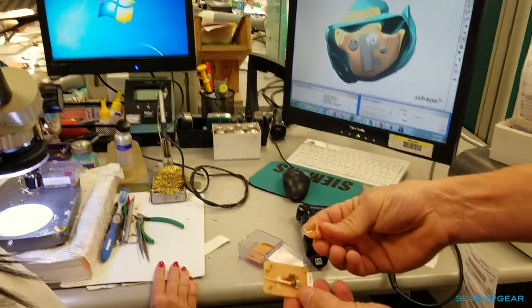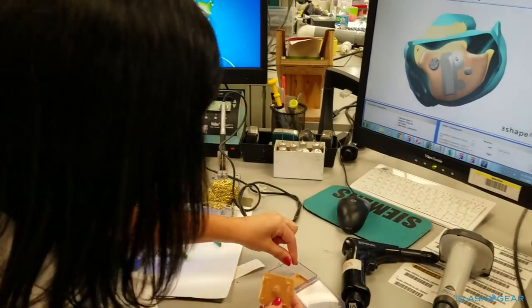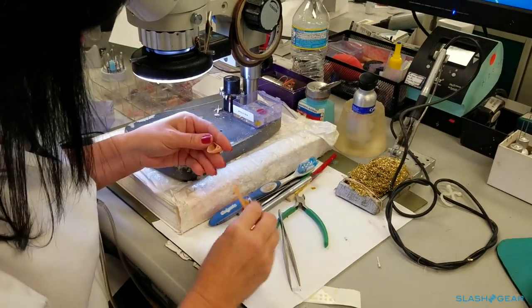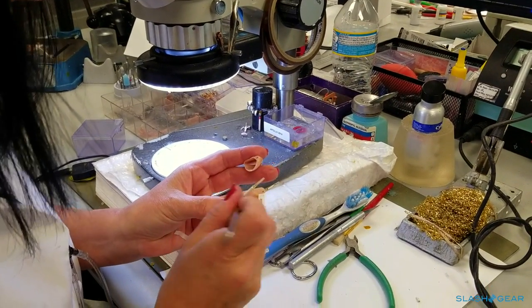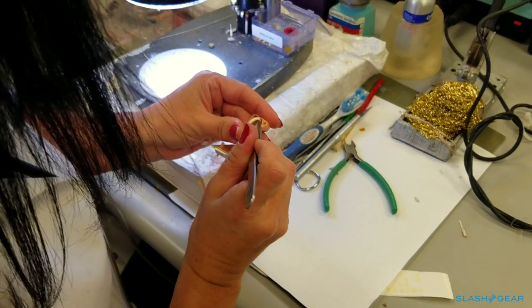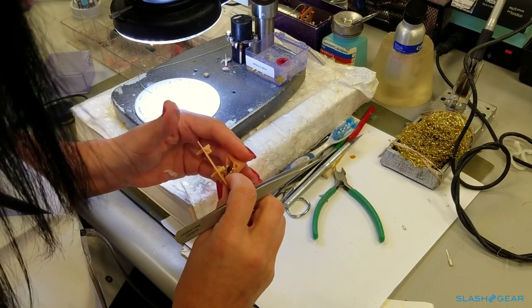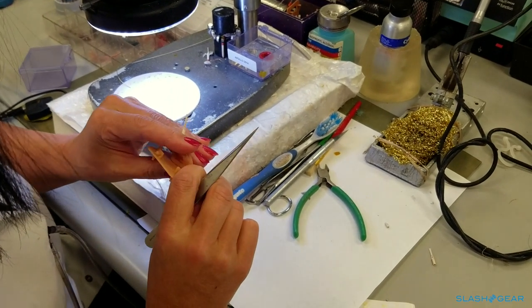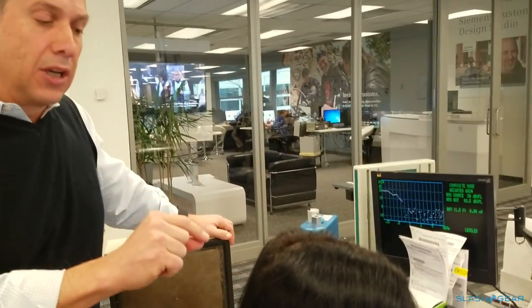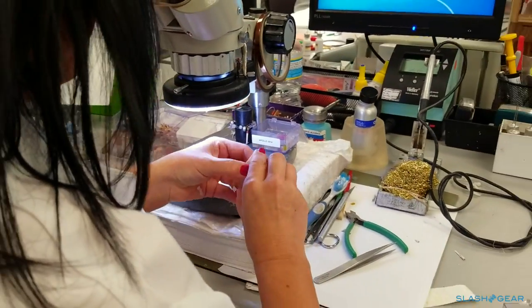Can you show how you would make the components fit in here — how we actually do that? Lordis has been here 27 years, so it takes a long time, and we really like to hold onto our people, especially when they're as good as she is. If you had more time, I'd love to let you try it yourself — because as quickly as she did it, it's not that easy. There's a certain orientation it has to be in, and then we'll cut away the excess material with a sonic knife and finish the shell off.